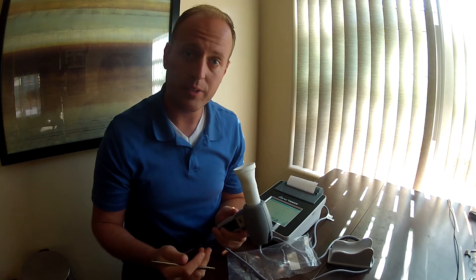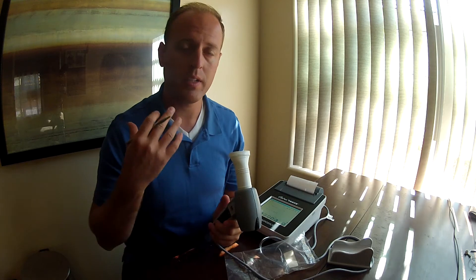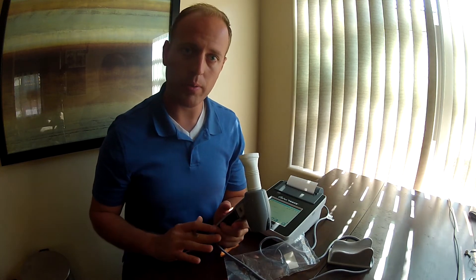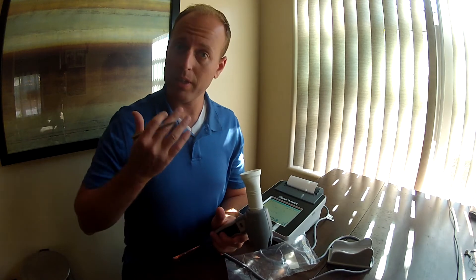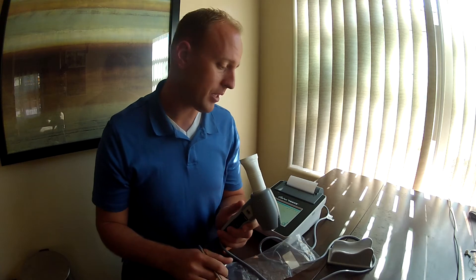This machine allows you to do tidal breathing. A patient can put their mouth onto the mouthpiece, relax, breathe the rest of the air out of their lungs, then sharply increase their breath to fill their lungs, and then breathe all the way out until it's empty. At the 6-second mark, it will finish. It triggers itself when you sharply increase your breath, so the patient doesn't have the anxiety of having to prepare beforehand. It's very easy for the patient.